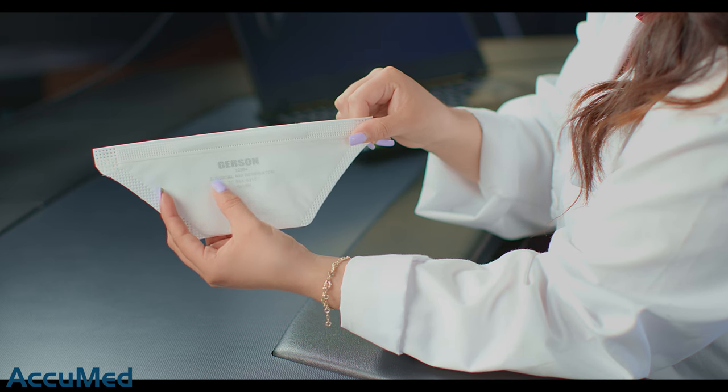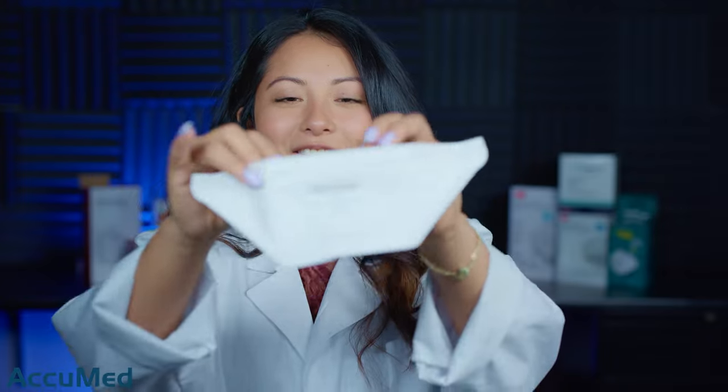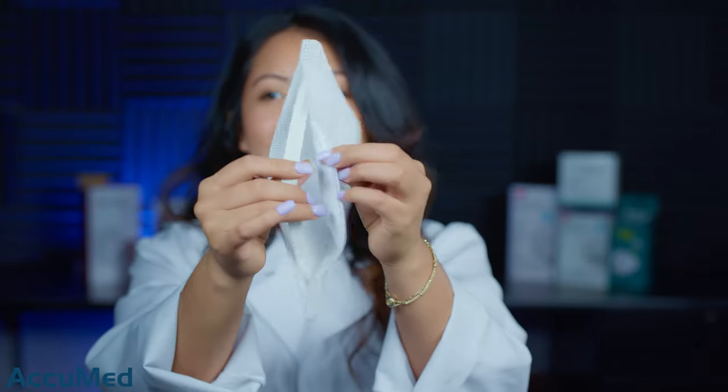Now let's go ahead and take a look at these respirators. These don't have the best construction quality. They are a little flimsy. I was thrown off because it looks like it only has one strap, but you can see that it has a slight line here that you can just pull them apart.